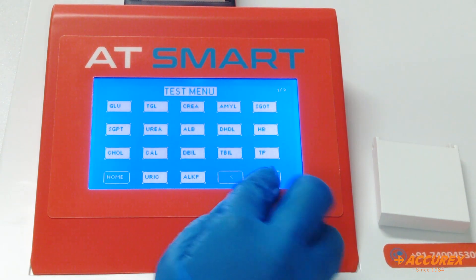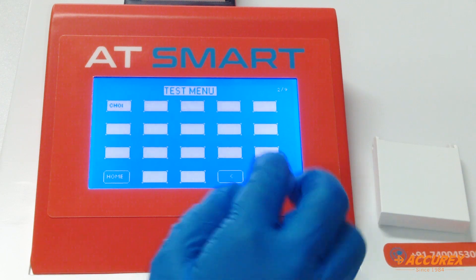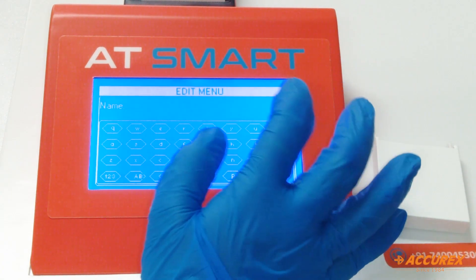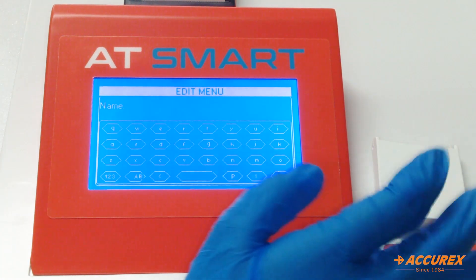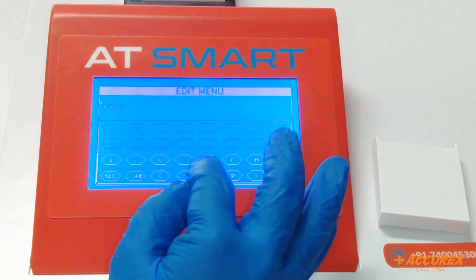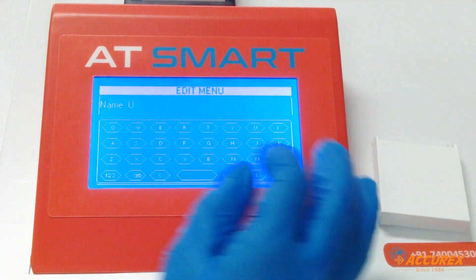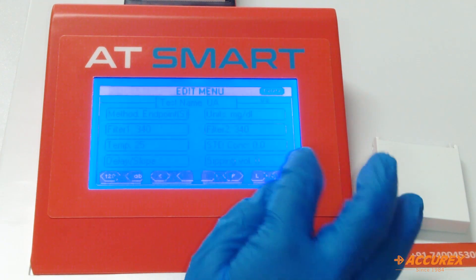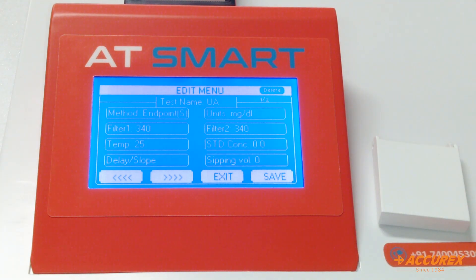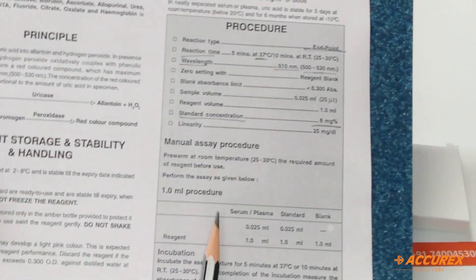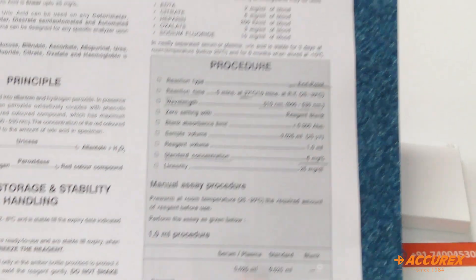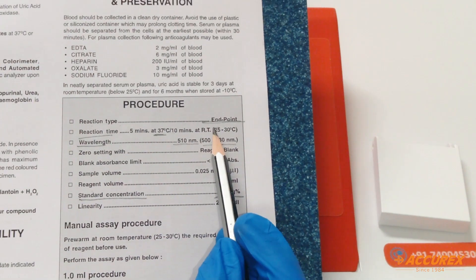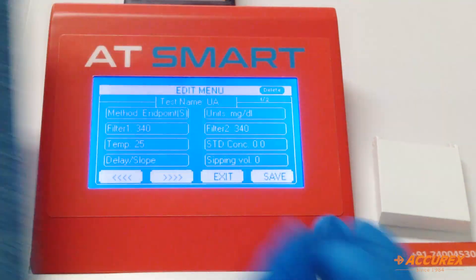From the main menu of this instrument, go to the blank test and first rename the test to uric acid. For other parameters, we are using the pack insert. The first parameter is method — uric acid is an endpoint reaction, so select endpoint and enter.